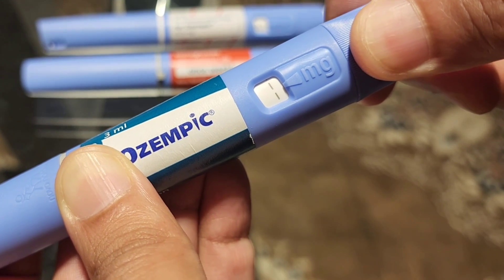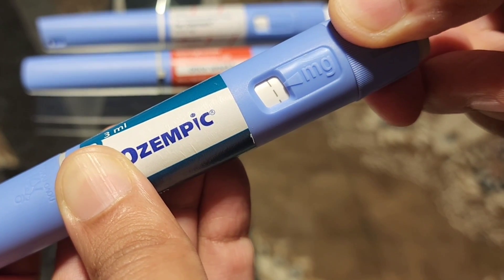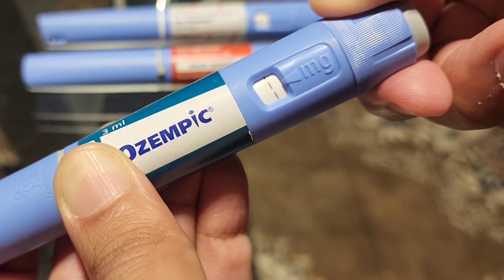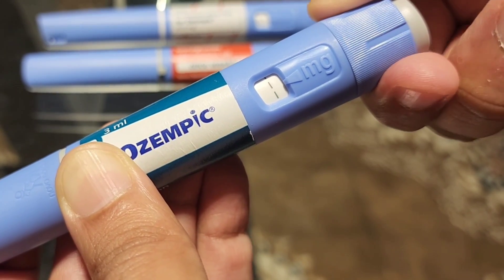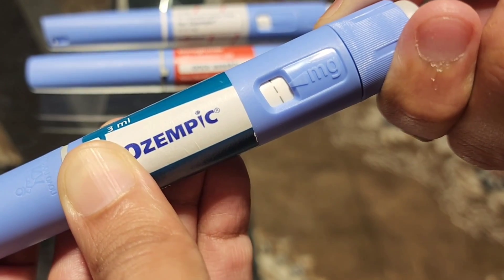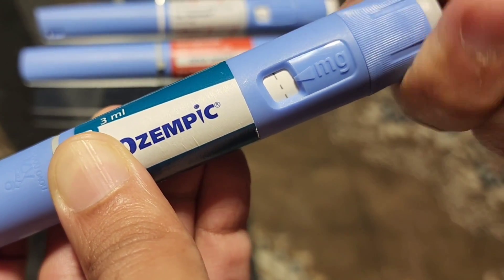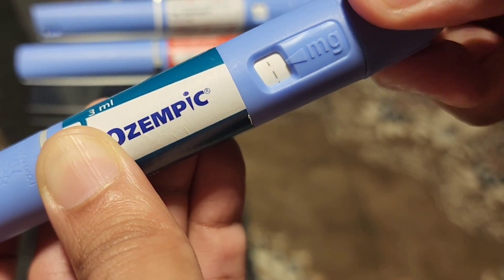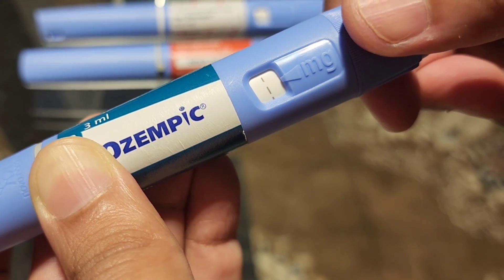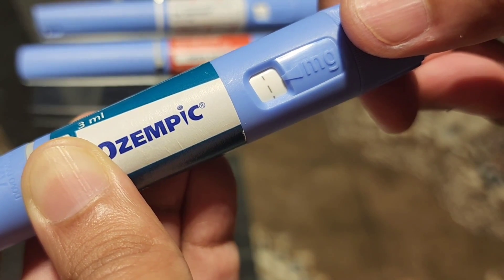19, 20, 21, 22, 23, 24, 25, 26, 27, 28, 29, 30, 31, 32, 33, 34, 35, 36. Now at 36 clicks you are going to get a 0.5 milligram dose.